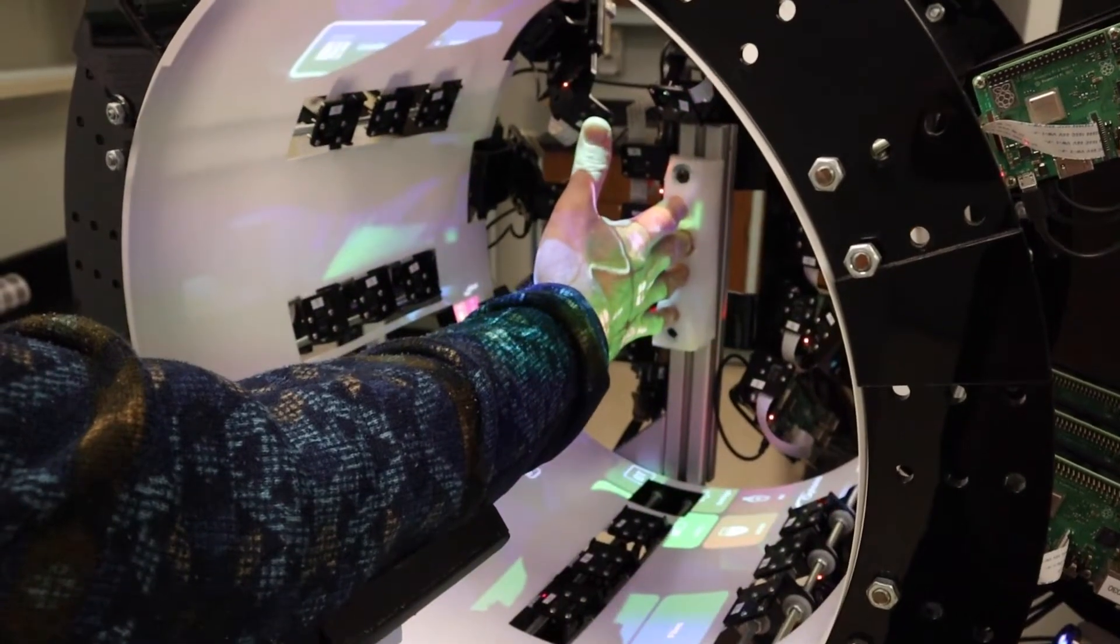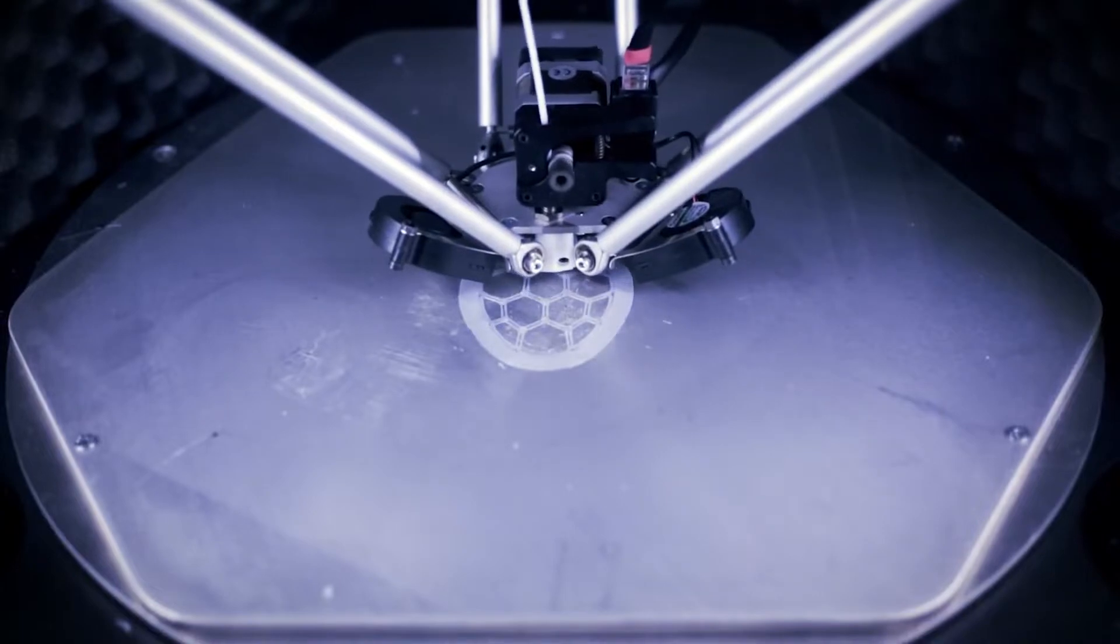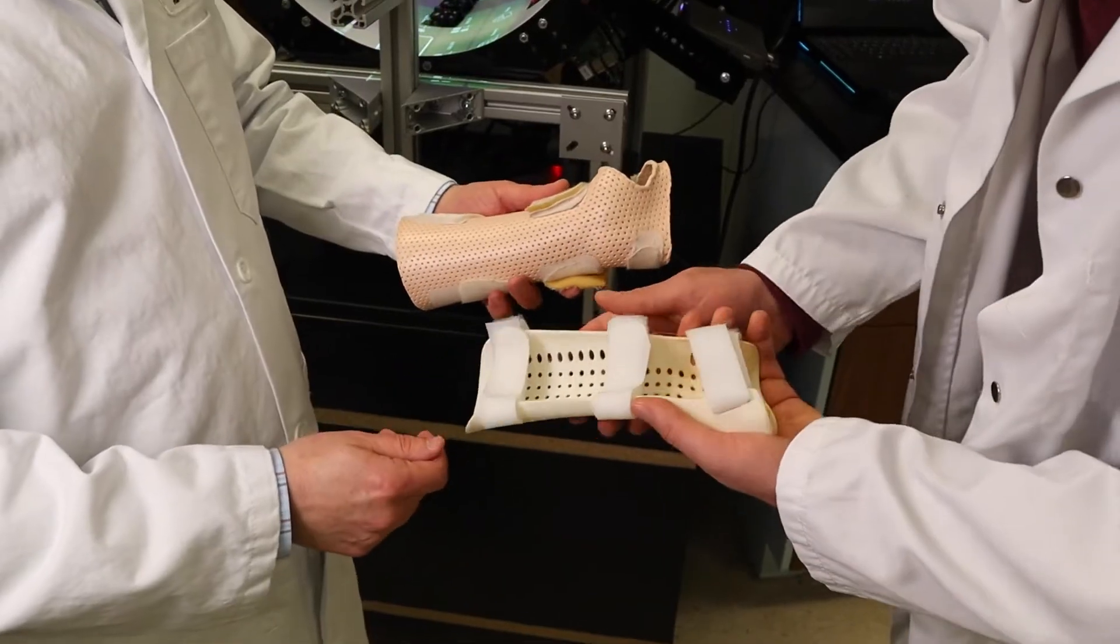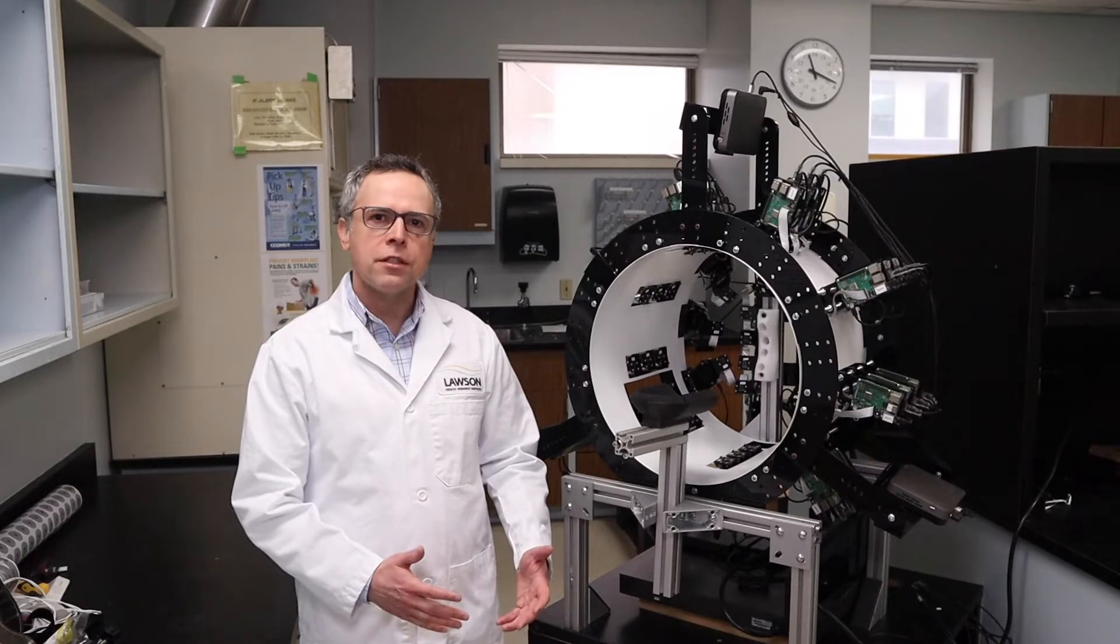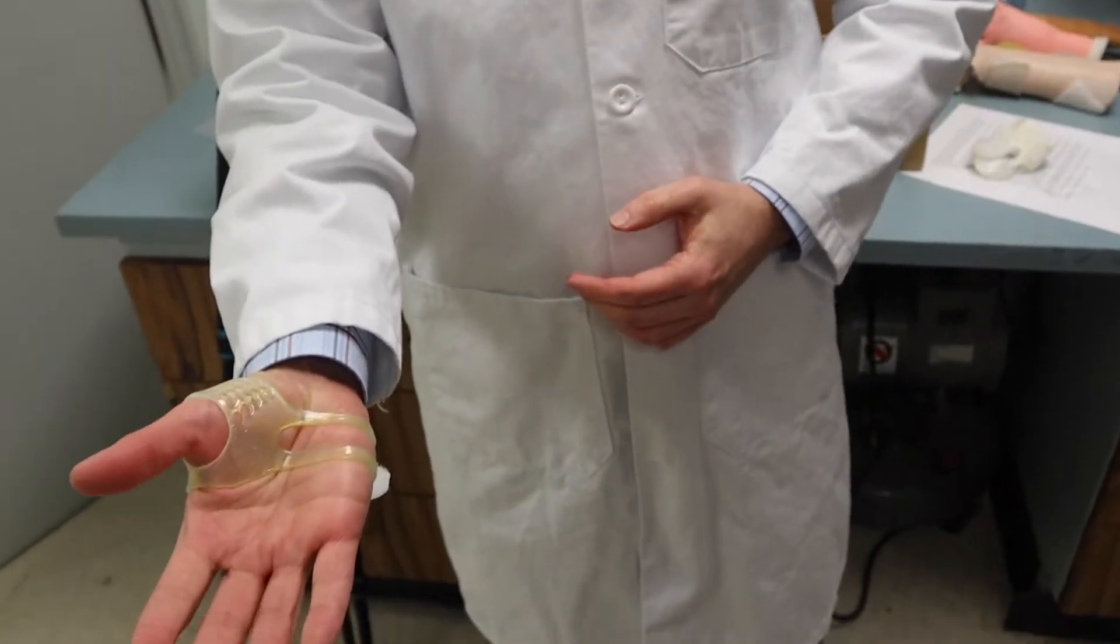We've developed a process by which we can use 3D printing technologies to make splints in a different way, which takes the load off of therapists but also creates a better splint for patients.